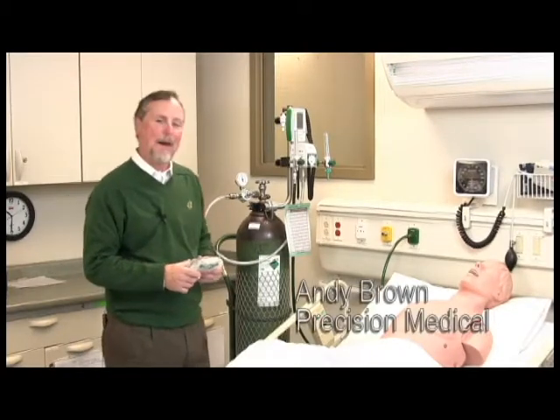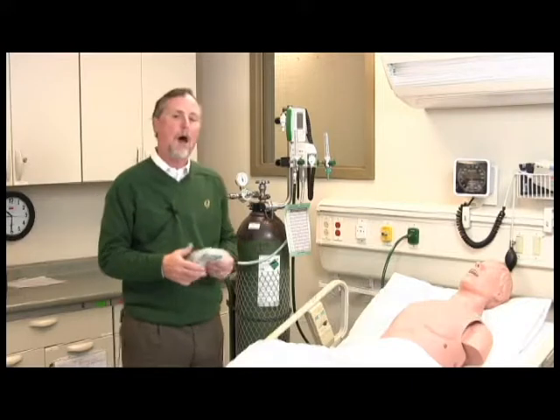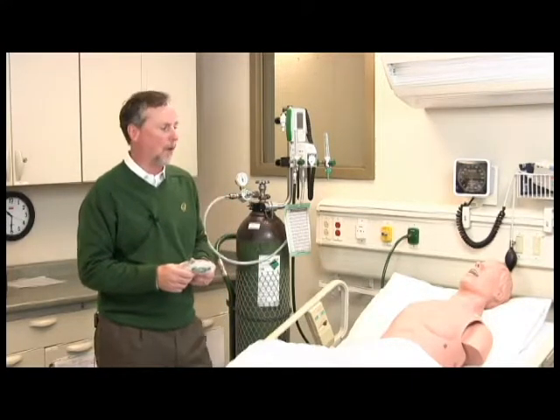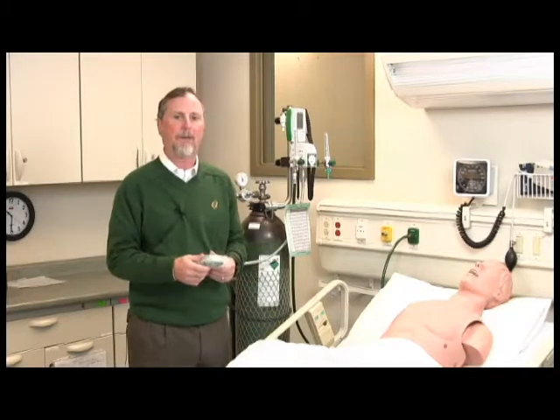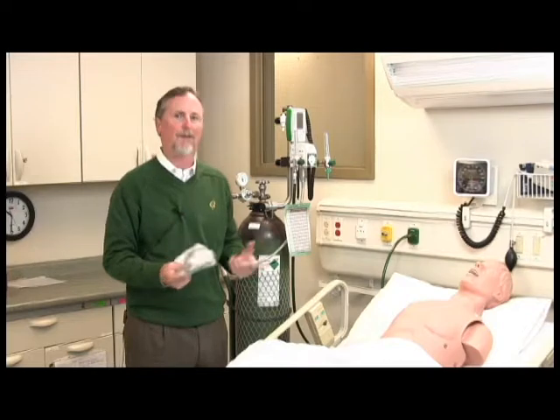Okay, now we're going to talk about initiation of Heliox therapy. The most common way of doing Heliox therapy is via a high flow system, so as to meet the patient's inspiratory demand. In this example, we have a non-rebreather, although there's evidence out there for other devices to be used.